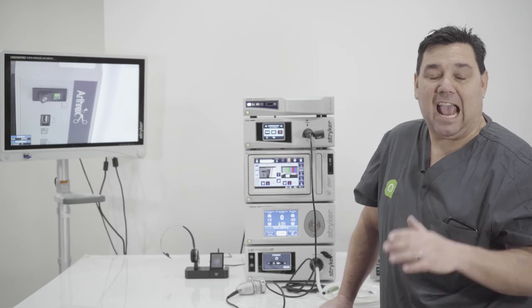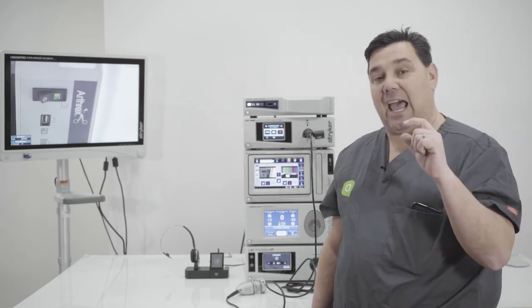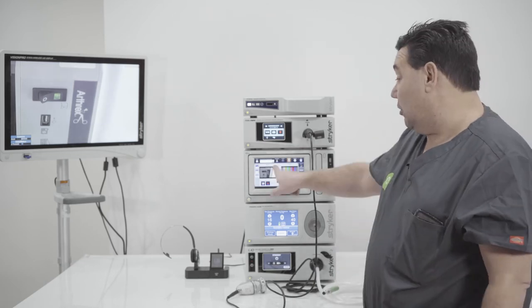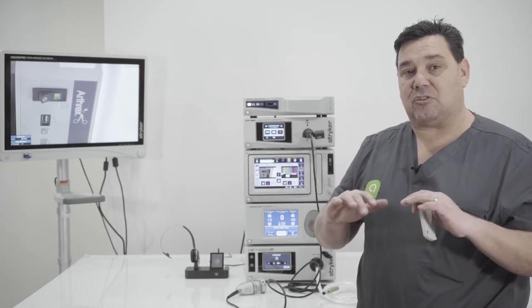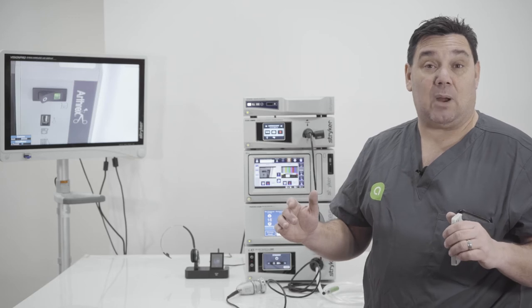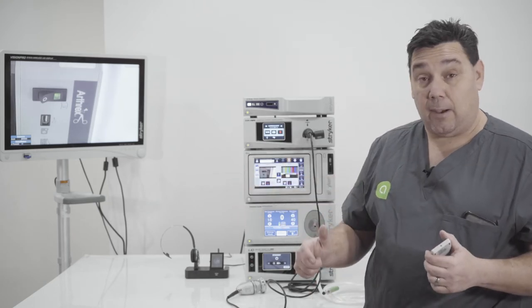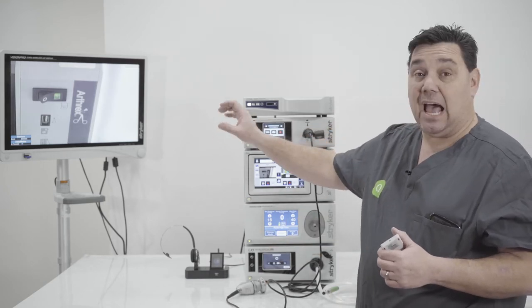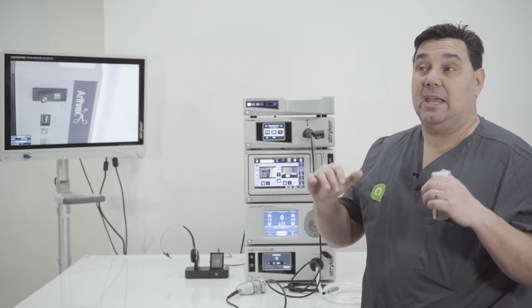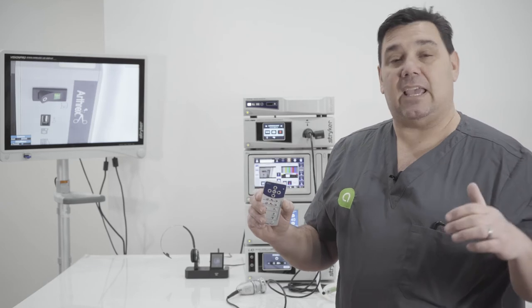There are a lot of things you can add to your SDC. One feature is called Device Control — you would have a separate software dongle that you download into the unit. Once downloaded, the Device Control option will be highlighted; anything grayed out on the SDC means you cannot perform those functions, either because you don't have the software or it's not installed correctly. With Device Control set up, the actual image on the monitor will show you the device control interface.